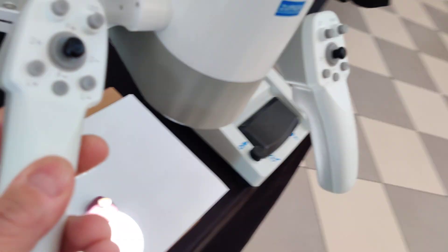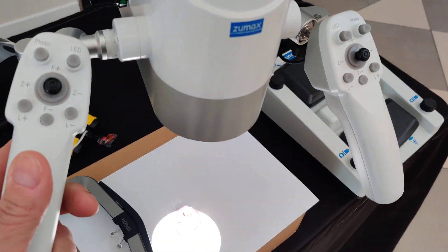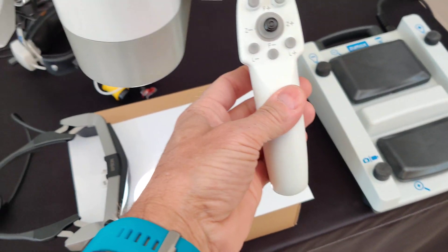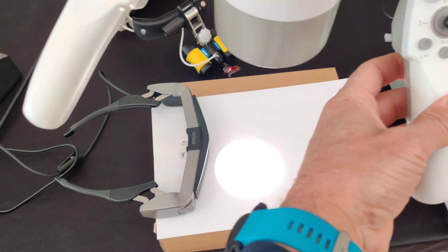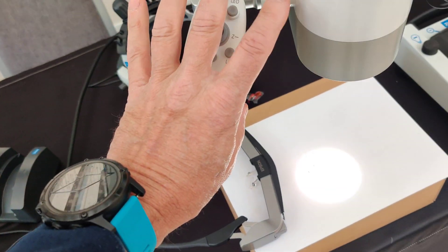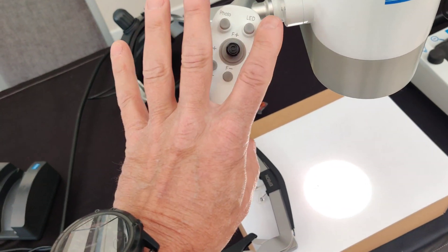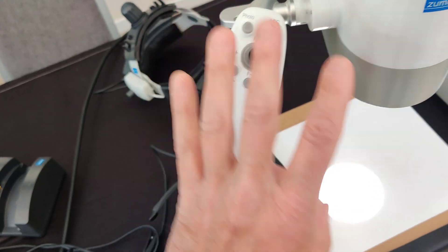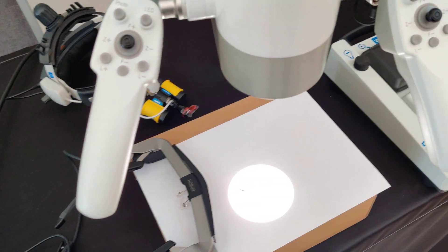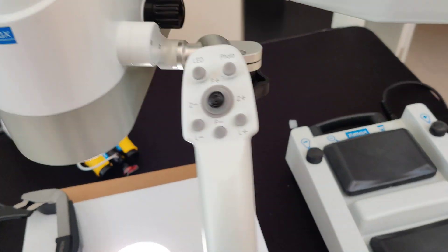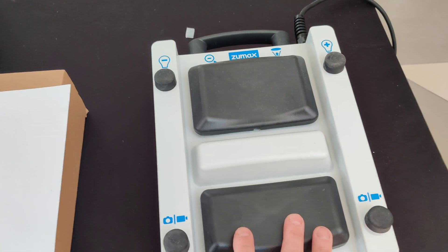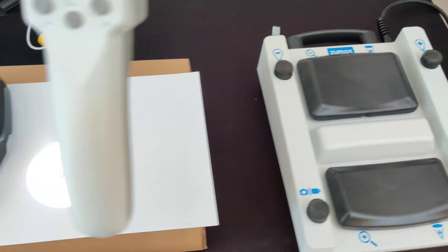We can move from the push buttons either on the left. You see lock, unlock the magnetic brakes, or on the right. Every command or control that you have on the left side you have on the right side. It's the same thing. Not only, but you also have on the foot control.